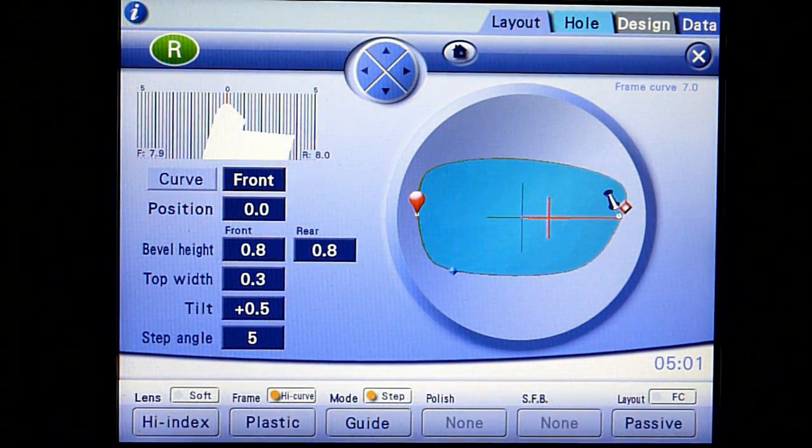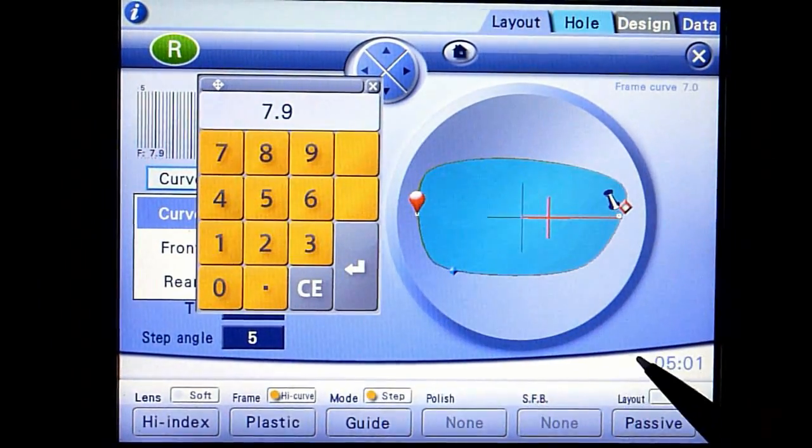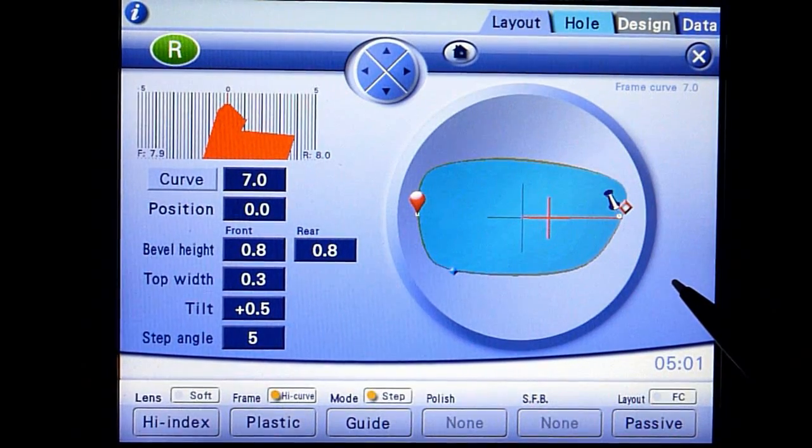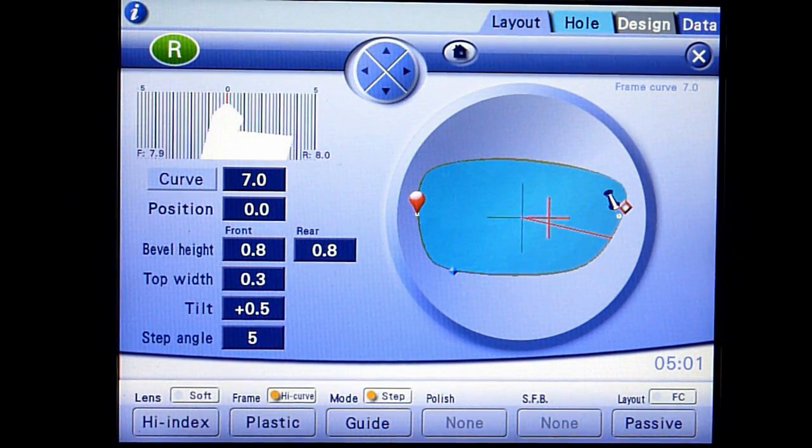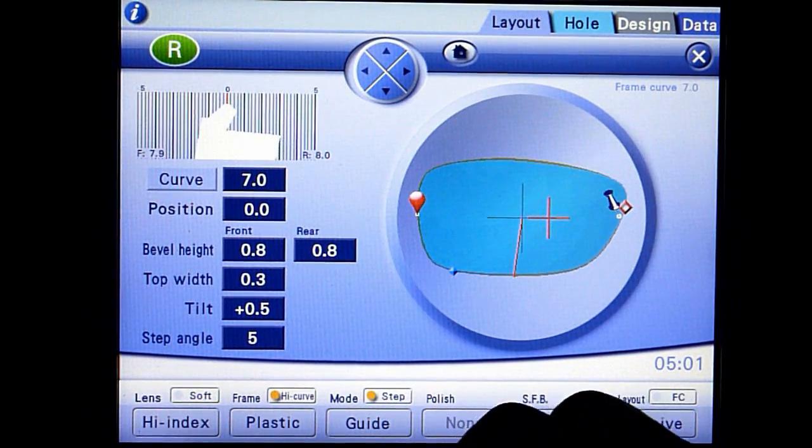Touch the curve button and then select curve again. Enter the bevel curve value to best match the frame curve. Review the bevel placement using the jog dial again. Press start to complete the re-edging process.